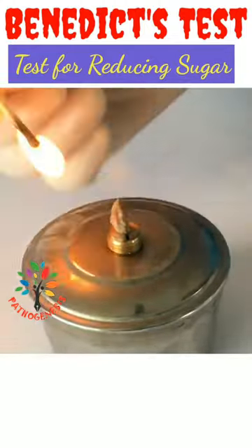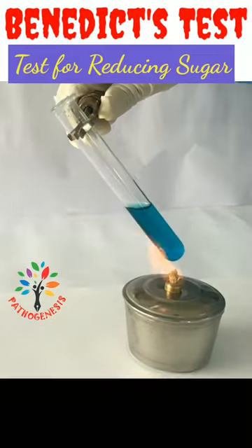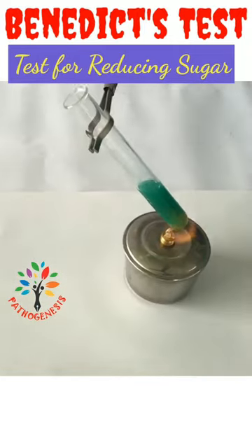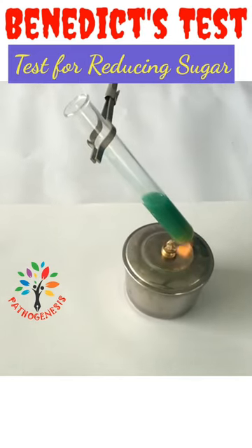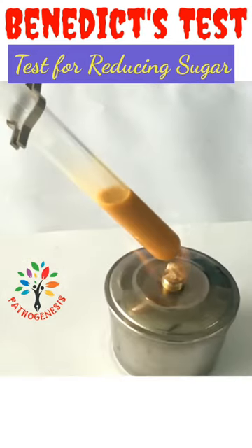With the help of a spirit lamp, heat the mixture carefully until it boils. For boiling the mixture, you can use a Bunsen burner or hot water bath also.